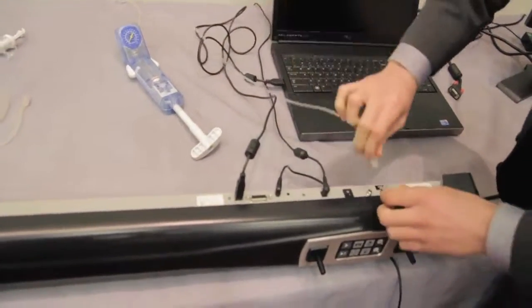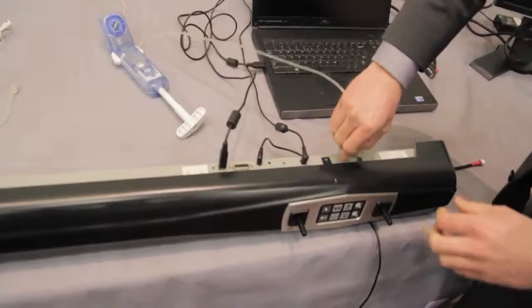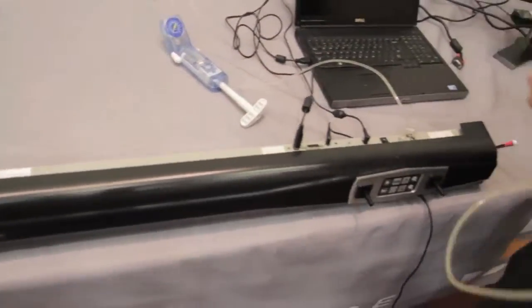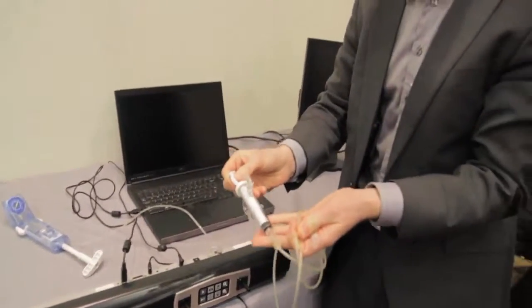We'll then attach the indeflator and then we'll attach the syringe. Please note there's only air to be used in the syringe, no liquid.